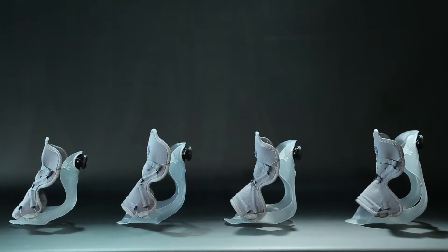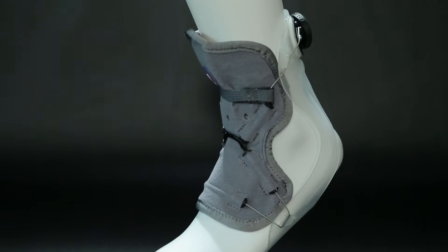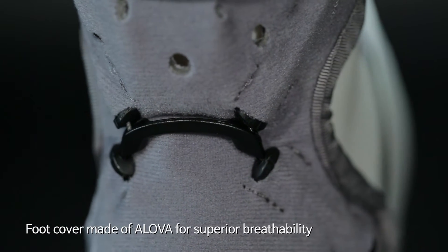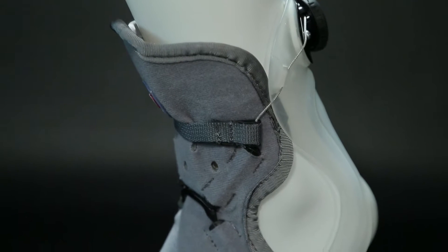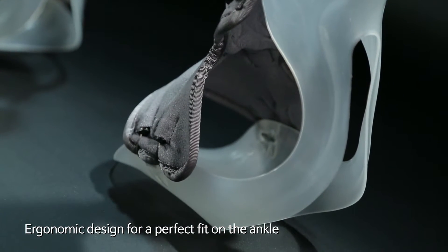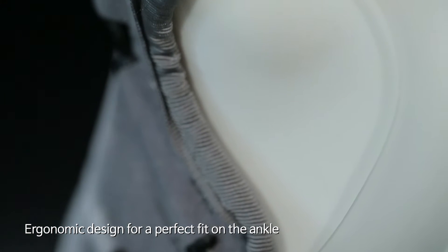The AF Servo is an ankle joint brace made of plastic designed for those who have difficulty in walking. The Alova microfiber fabric cover comfortably wraps around the weakened foot and has excellent breathability. It doesn't pill nor fuzz and can be used for a long time. The plastic components are ergonomically designed to secure the ankle firmly to the foot, preventing poor foot alignment.